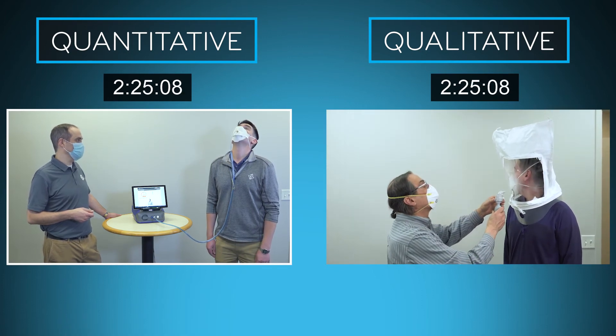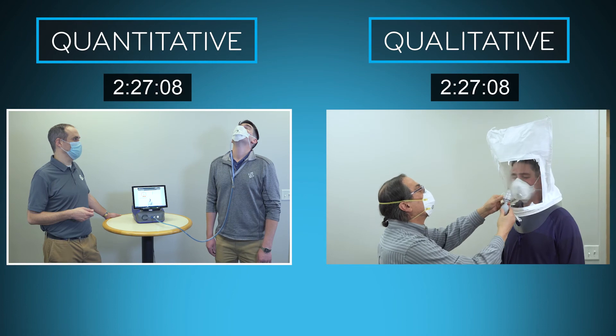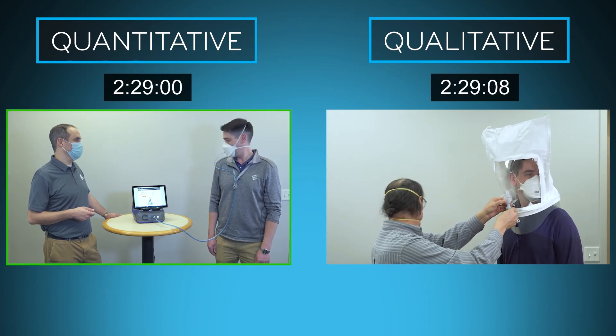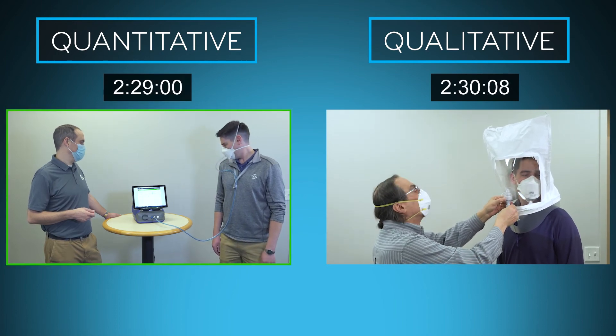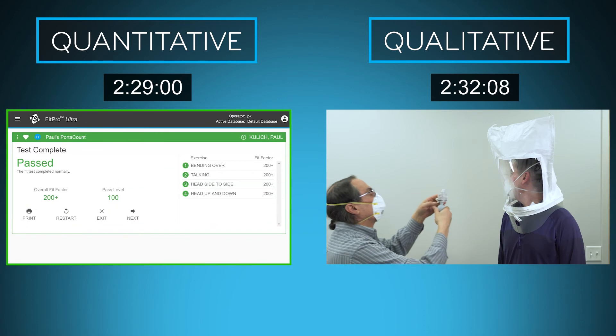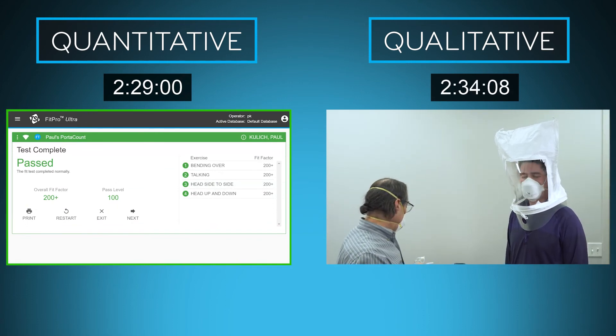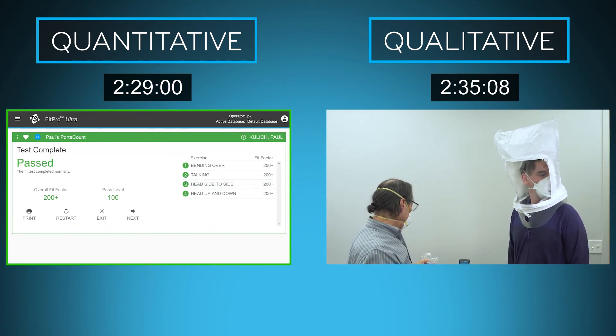After just 2 minutes and 29 seconds, the quantitative fit test is complete. The screen displays the results for each exercise, the final fit factor, and the result of a passed fit test.